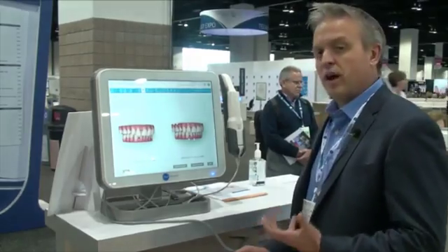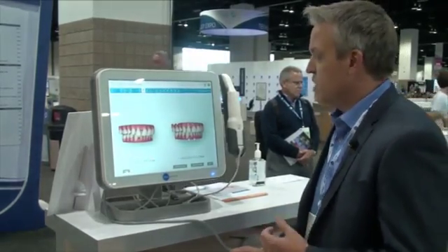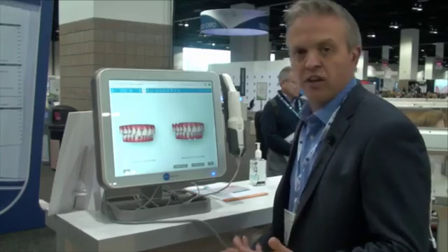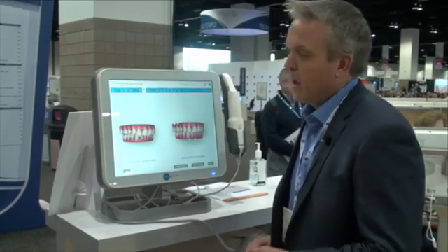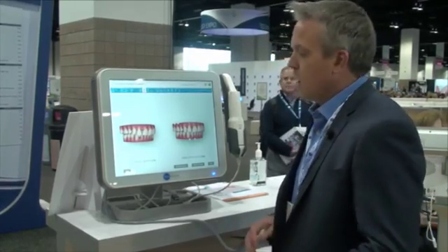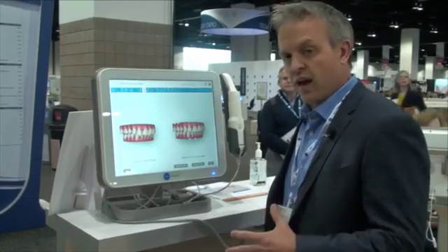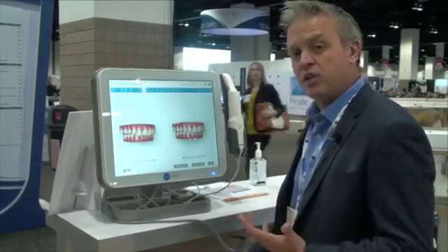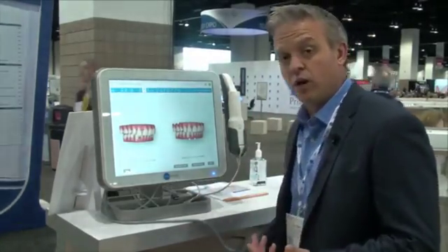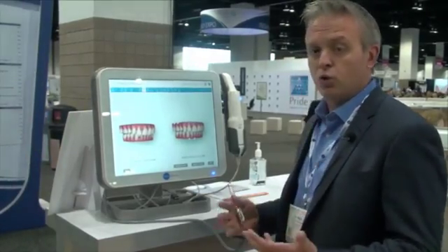We use this in our practice all the time. I love this feature. What it enables you to do is imagine that you have a patient in a hygiene chair and maybe they're thinking about Invisalign. In just a matter of minutes you can do a scan and run the simulation, and it gives the patient a — we call it a test run — of what Invisalign can do for them. It's a really powerful tool.